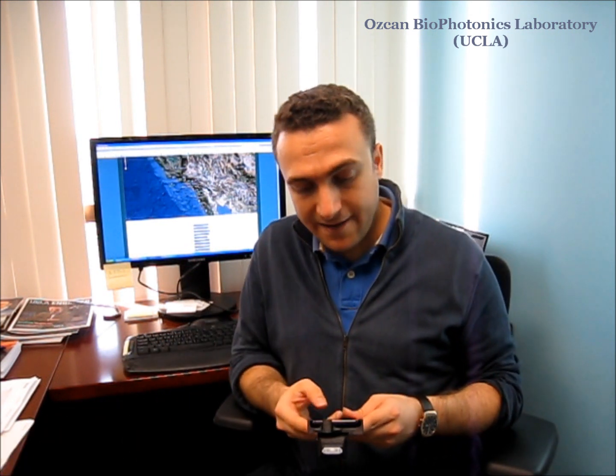What I've inserted here is a malaria diagnostic test, but using different tests you can look at HIV, TB, other infectious diseases, or waterborne parasites using the same platform. The platform has a smart application that digitizes an enlarged image of this rapid diagnostic test and analyzes what's imaged to understand if the test is valid or not, and if it's positive or negative.